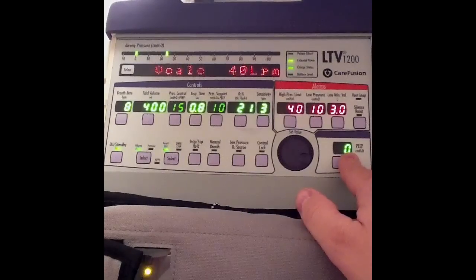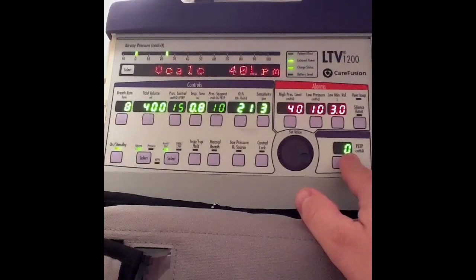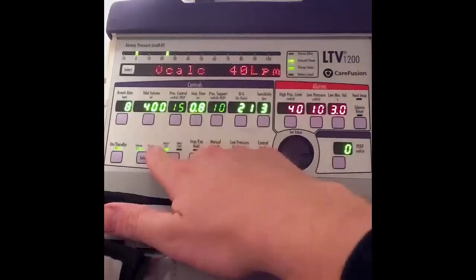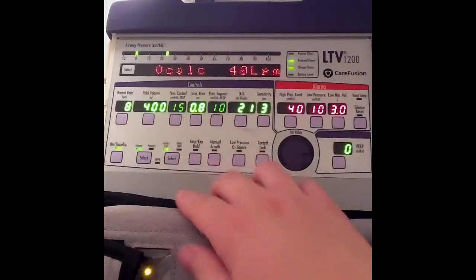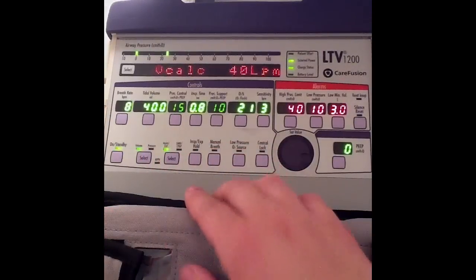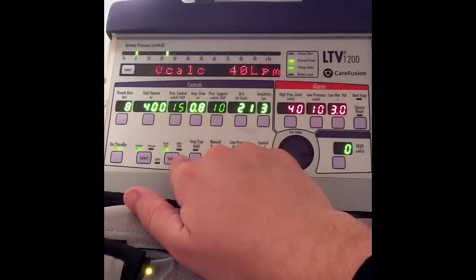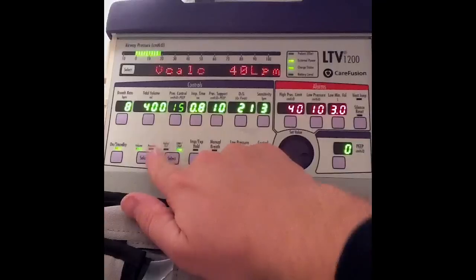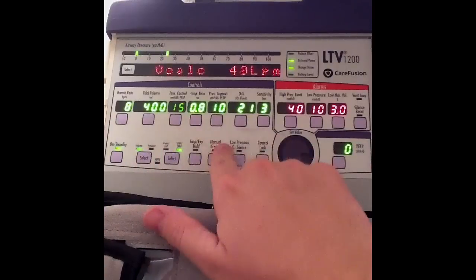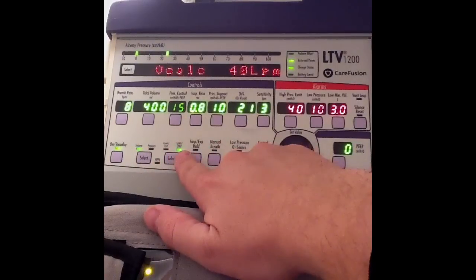Let's talk about changing modes. I'm currently in assist control and I want to change into SIMV. I'll hit the select button — it flashes — hit it again, and that switches me over to SIMV.